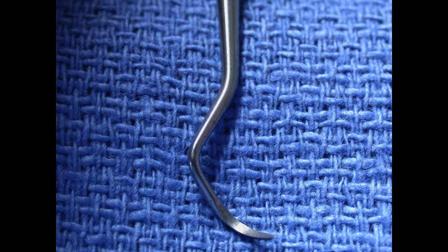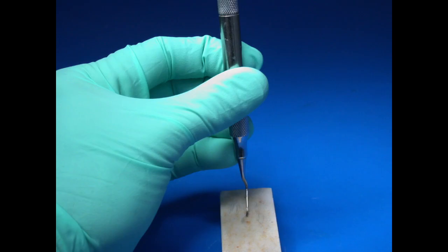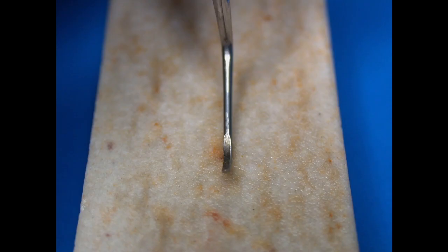When we're sharpening a periodontal curette, we have to take into consideration that only one side of that blade actually is the cutting side. Looking at it in this orientation straight up and down, with the toe pointing at you, you'll be able to tell an angulation difference between the two sides.